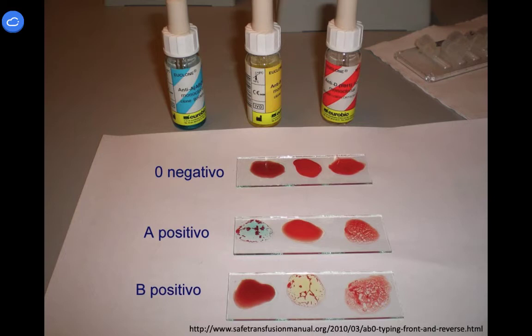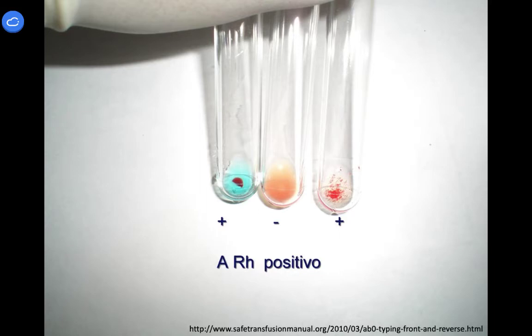If you had a B positive patient, it would look like what you've got on the bottom there. This is what it would look like in the tube, and this is kind of what we're going to be doing in the lab, is adding the anti-sera right to the blood in a tube and then spinning it. Big old clump for the A tube, no clumping for the B tube, and fine particulate clumping for the RH tube.